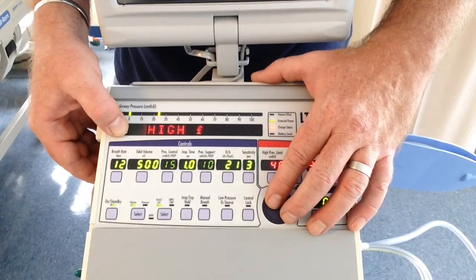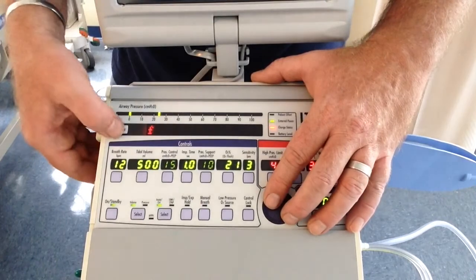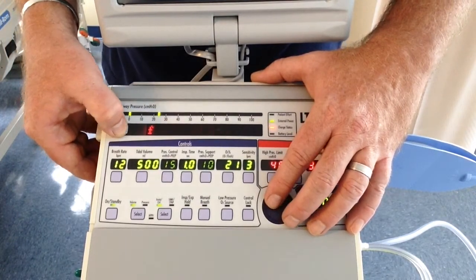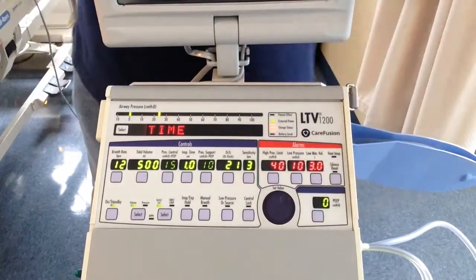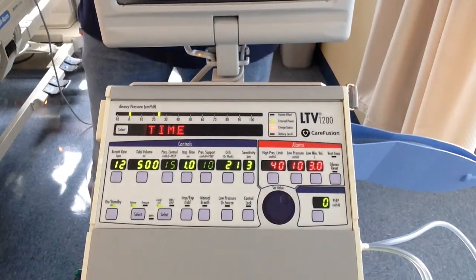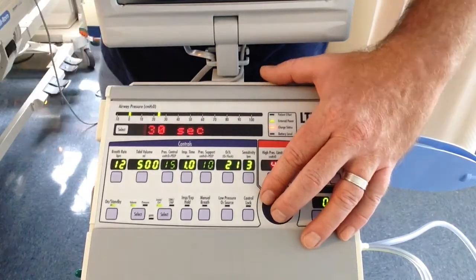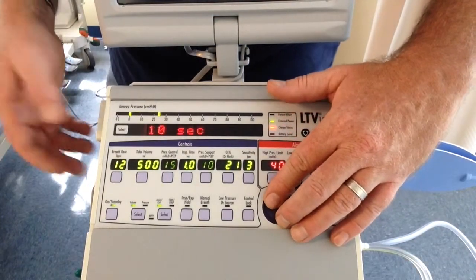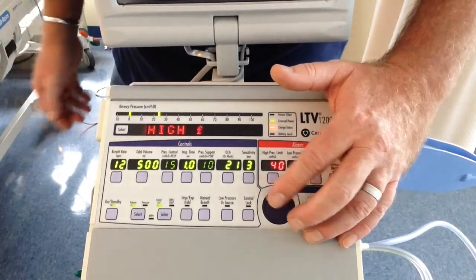So high frequency. I hit it, frequency, and there's another menu underneath high frequency. It's 40 breaths per minute. Do I like that? Let's change it to 41. Accept. Now time. So this one, once they hit 41, it does not automatically alarm. What it does is they have to breathe 41 breaths per minute for at least 30 seconds, and then it will alarm. If you don't like 30, turn it down. And we're done. And then you exit.